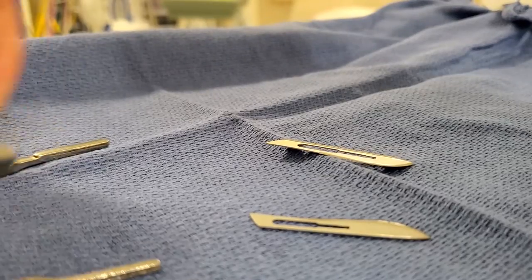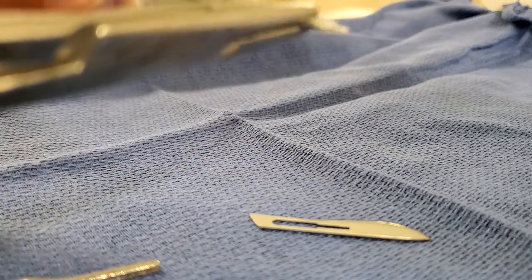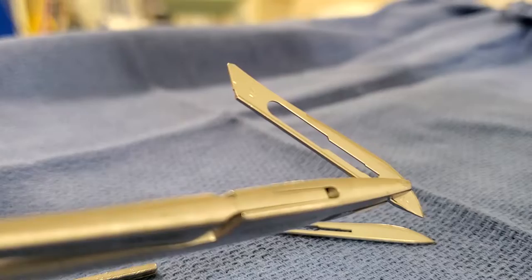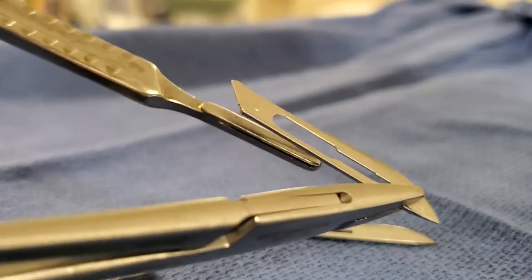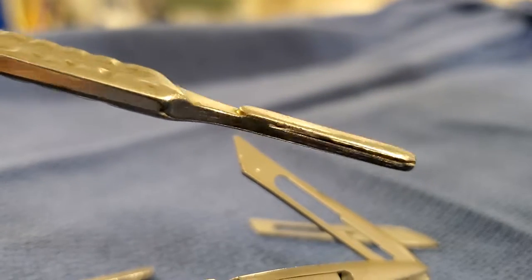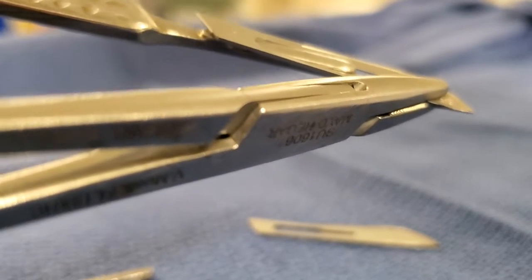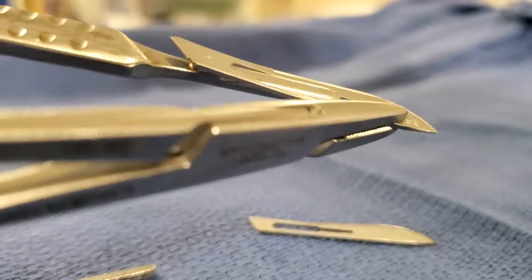Okay, let me put the blade again. I like to grab the blade from up here, like that, and align it here first. There are grooves in the knife handle — you see those? So I just go like this, aligning it, then you push it back.